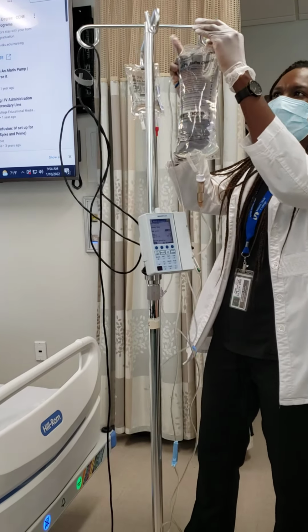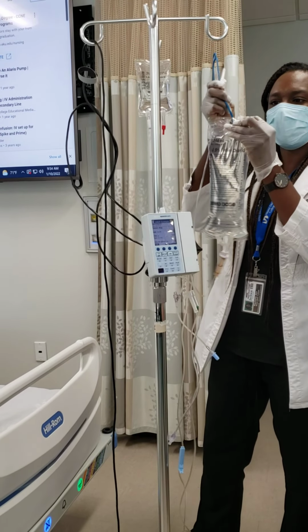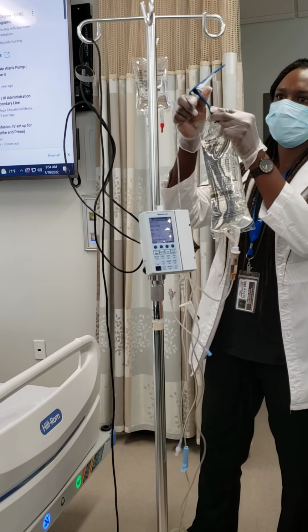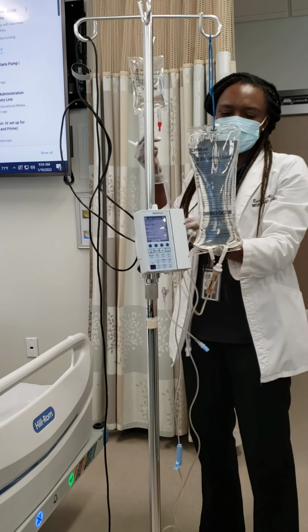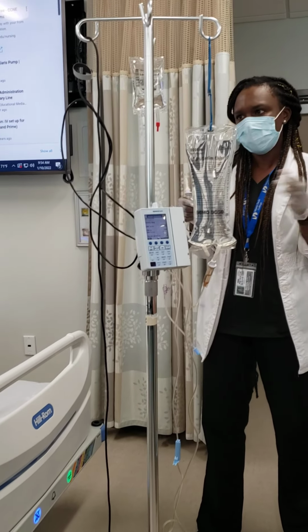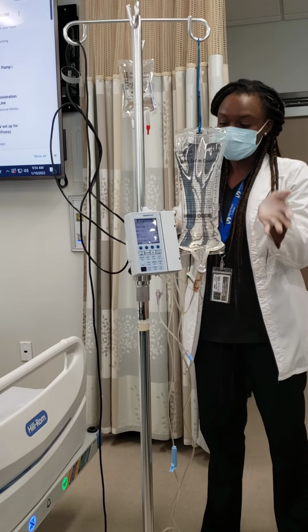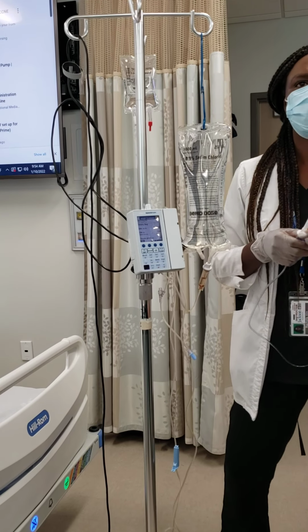Of course, the primary bag goes lower, right? You already know that. You take that, you put this through here. It can be done before, or we can do it after. Either way, before or after, it doesn't really change what you're doing. If you want to do this first and then put this lower, that's fine as well. If we don't hang it in the correct order, what happens?